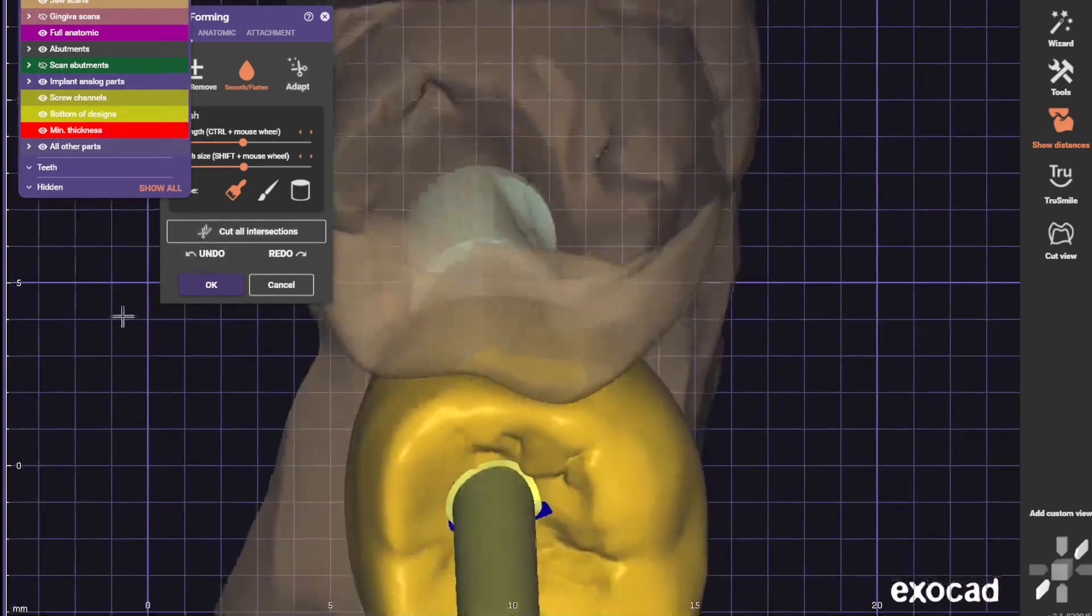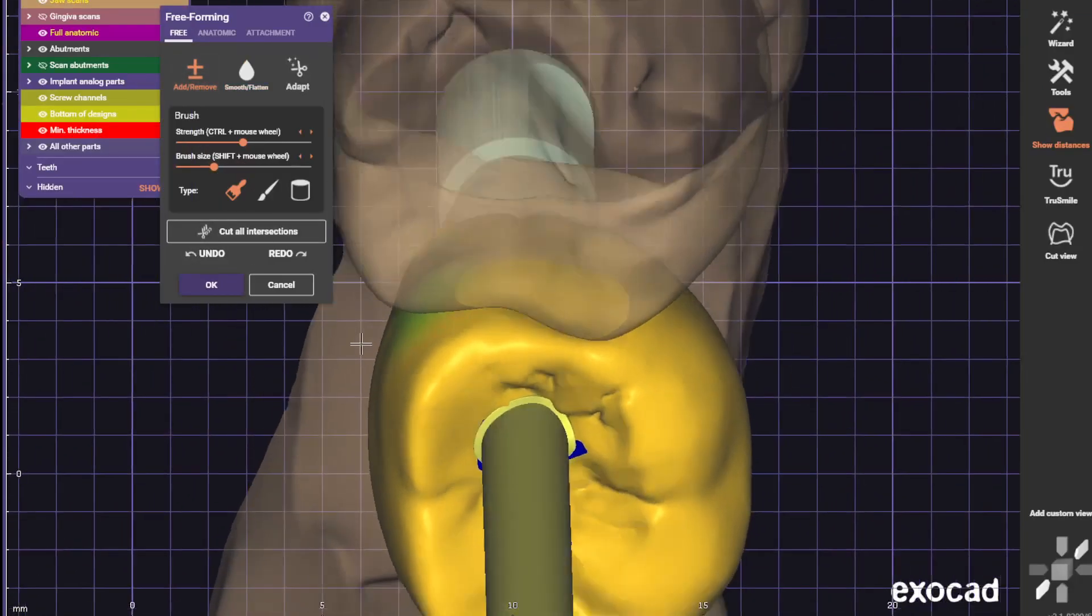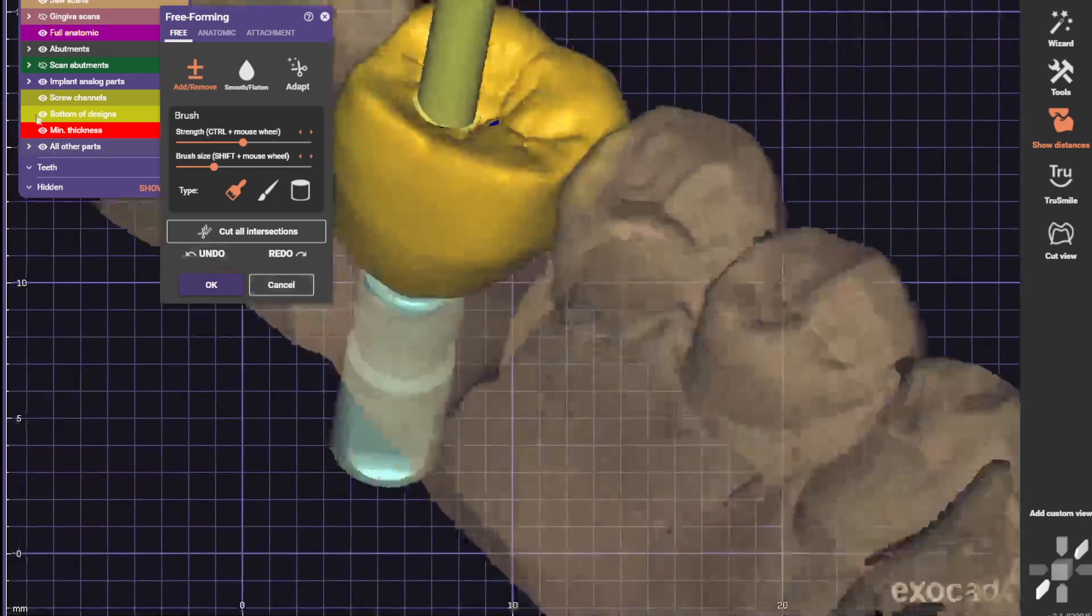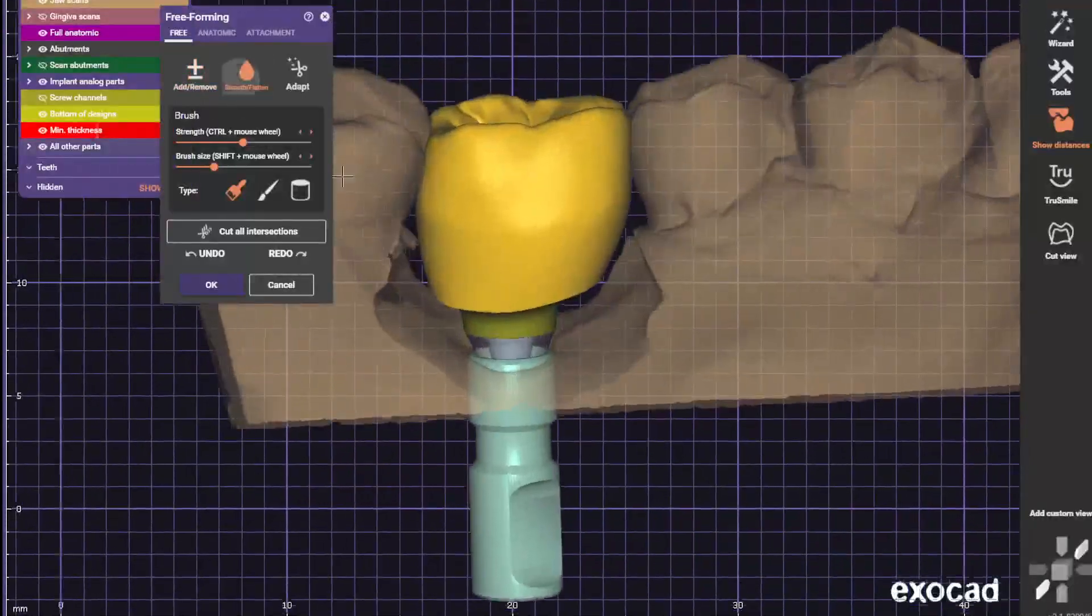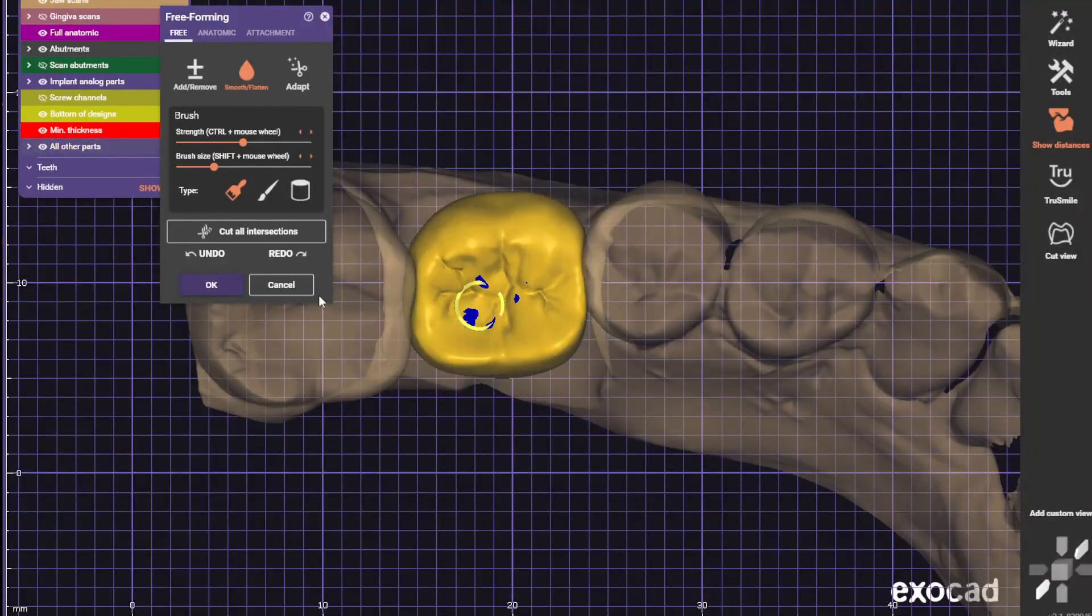Alright, so right here we're kind of coming around this contact, so I need to fix that. Let's go ahead and do that.